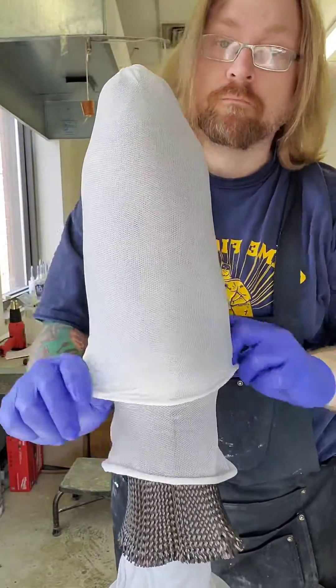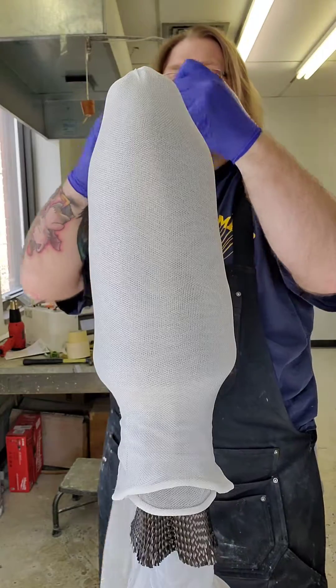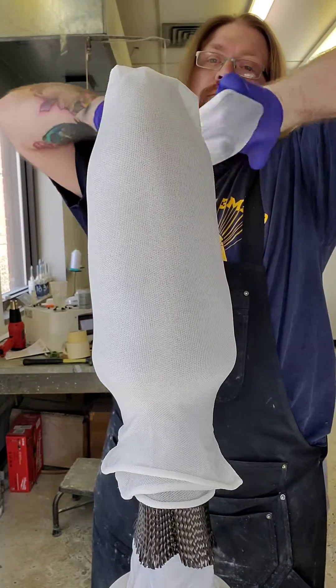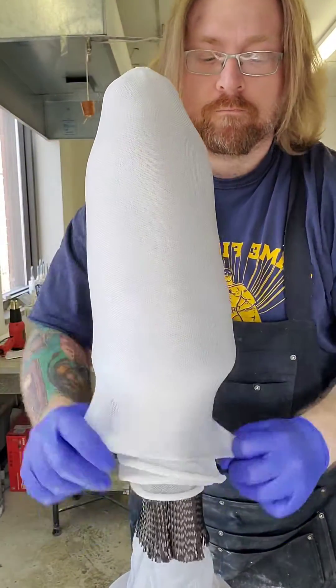Now that we don't see the carbon through the mold, I'll do four more layers of nyglass and then two flexi stretch nylon layers over the outside. This allows the pigment to take place and provide whatever color they want.